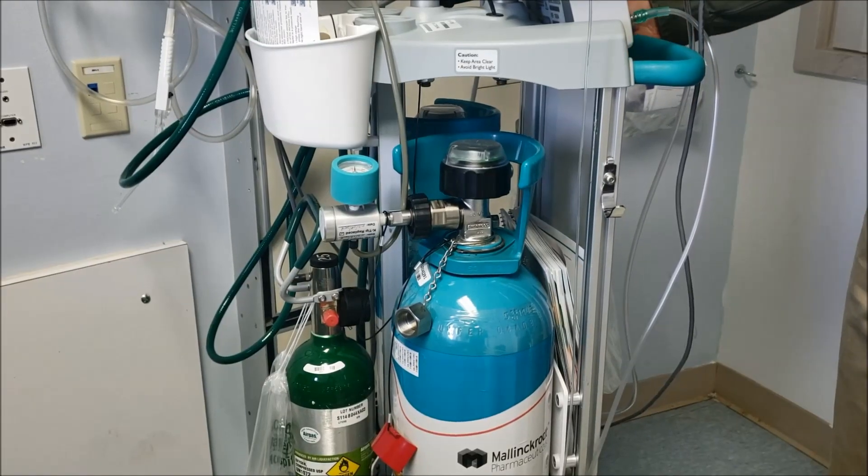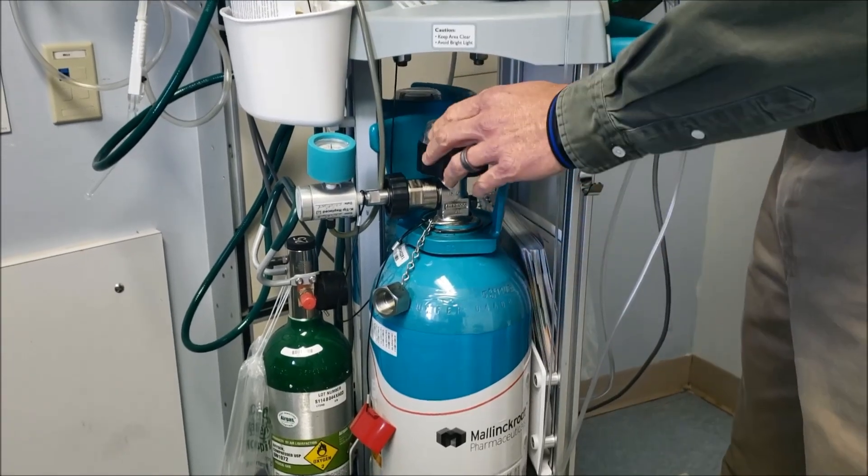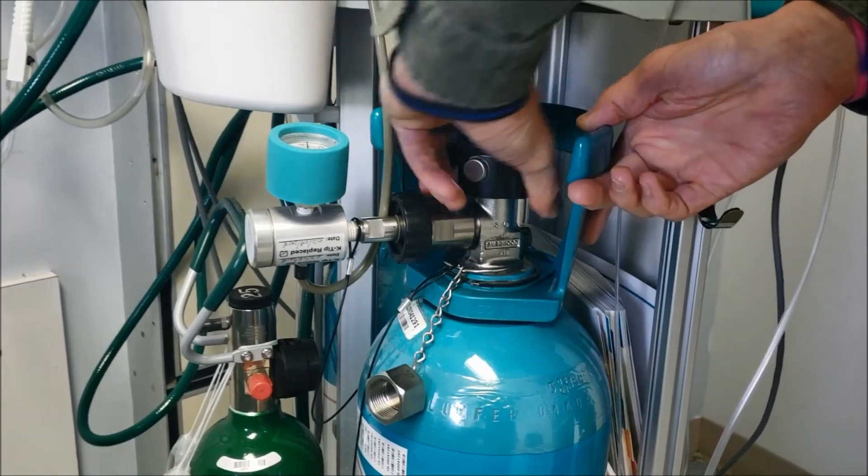When your test is concluded, two really important things to remember is one to shut the tank off. So we want to shut this tank off to close it out.